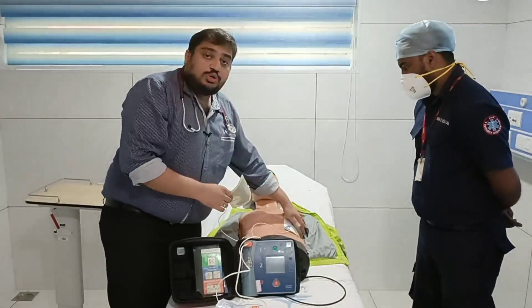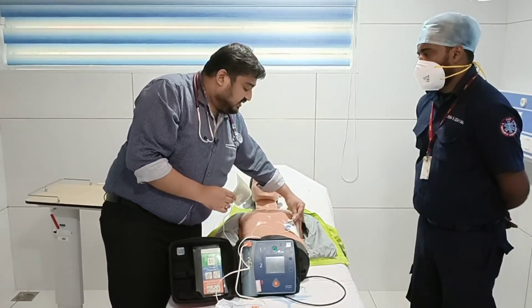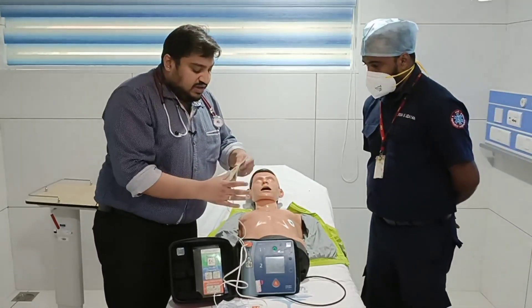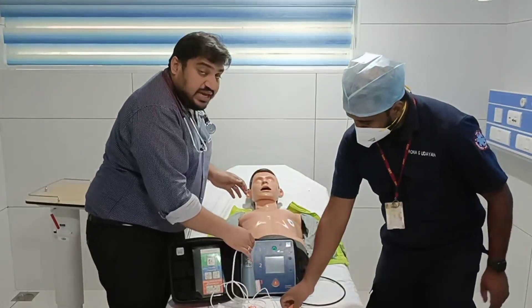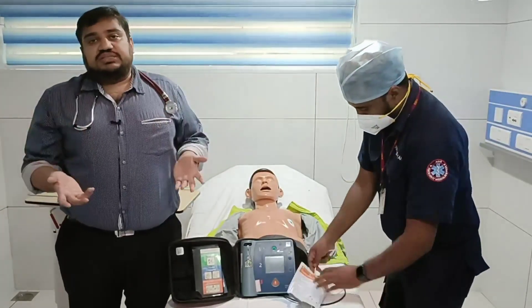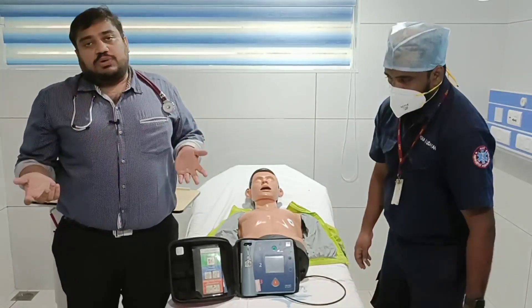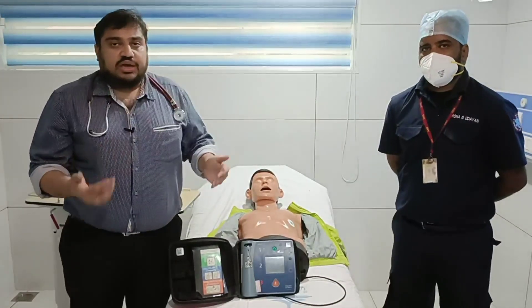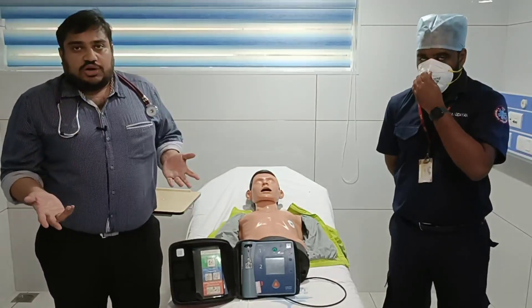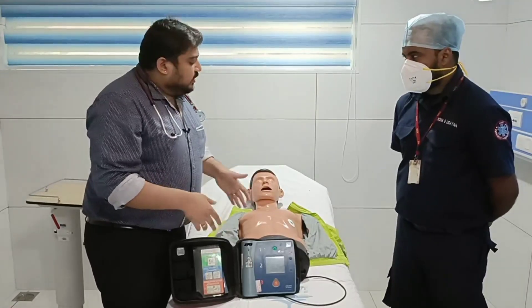Since it's a mannequin, the machine will not detect any rhythm here. The problem for a lay person is they can't recognize whether it's a shockable or non-shockable rhythm — VT and VF cannot be recognized by a lay person. So what the machine does is recognize whether it is a shockable or non-shockable rhythm, and depending on that, it gives advice: either 'shockable rhythm, deliver shock' or 'not a shockable rhythm, continue CPR.'